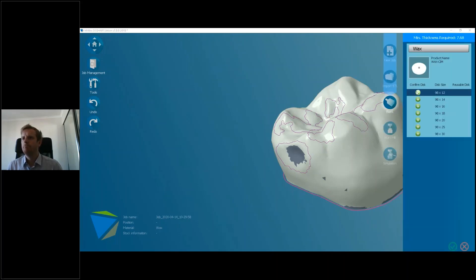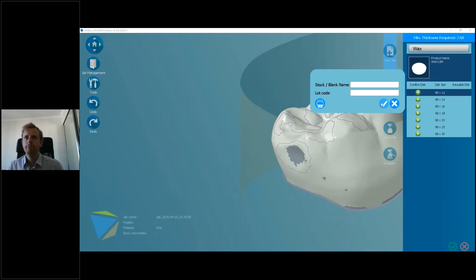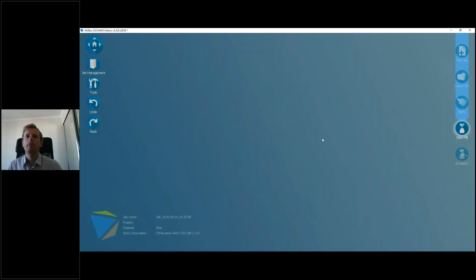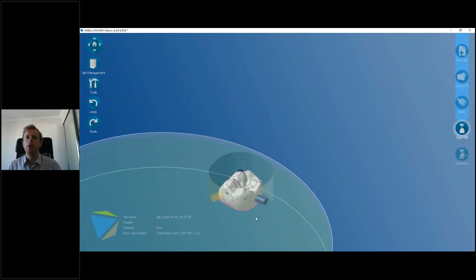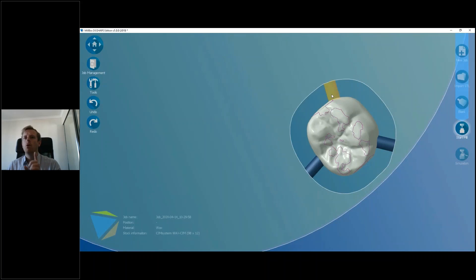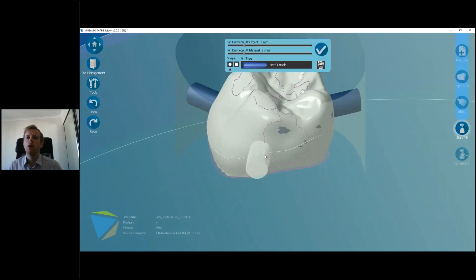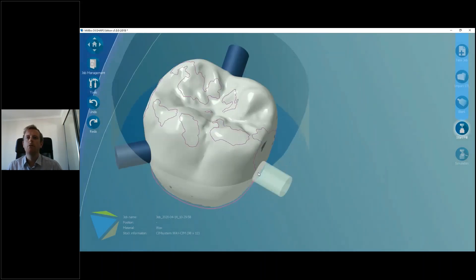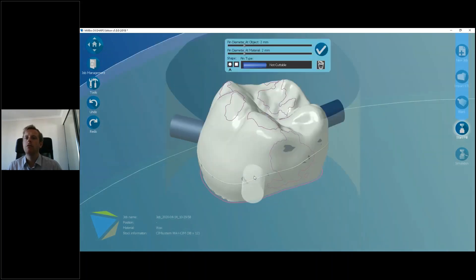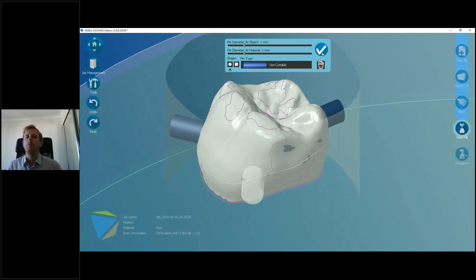Loading the crown into a blank — choosing 12 millimeters — we can see it automatically places sprues but one may flash yellow where it interferes with the contact area. Clicking on that sprue and moving it away makes it go blue. Moving it into a contact area flashes yellow. This information ensures you get the milled result you desire. Making use of this PTS file will make your life a lot easier. If someone is designing for you and you're milling for them, make sure you always get the PTS or the construction info file.